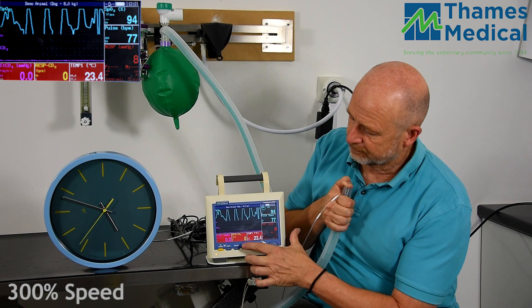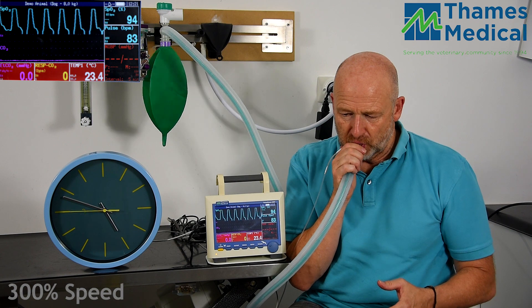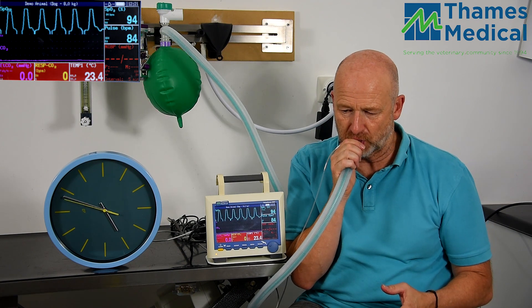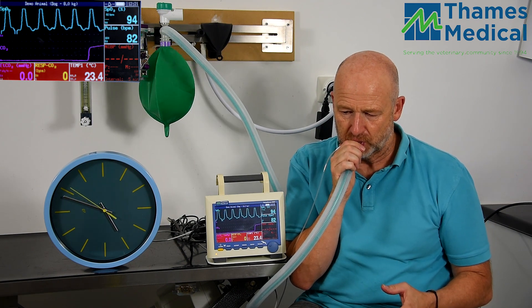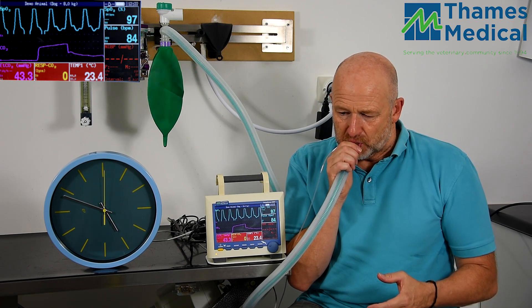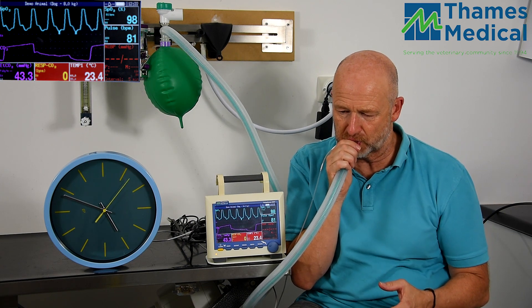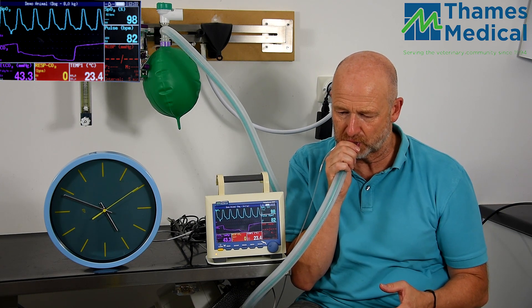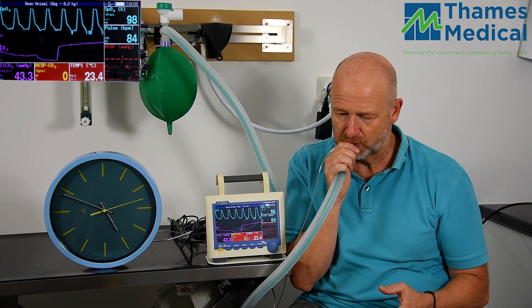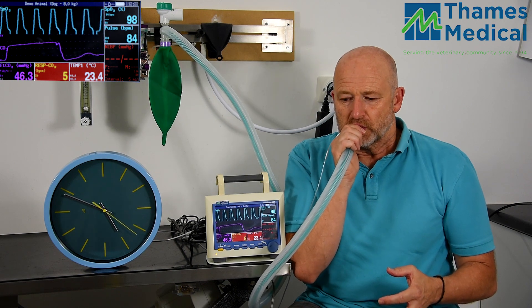OK, let's do that again. This time I'm going to attempt to take three or four breaths from the rebreathing bag. Please note this is only a two-litre rebreathing bag and it wasn't that easy, even at eight litres a minute, for me to fill my lungs with the capacity that I have.